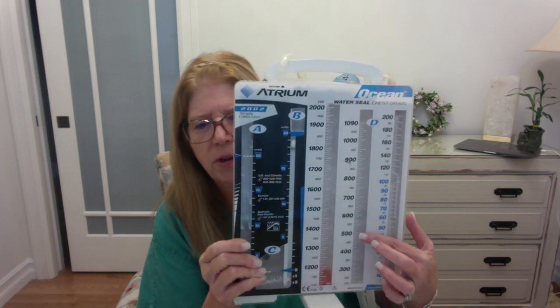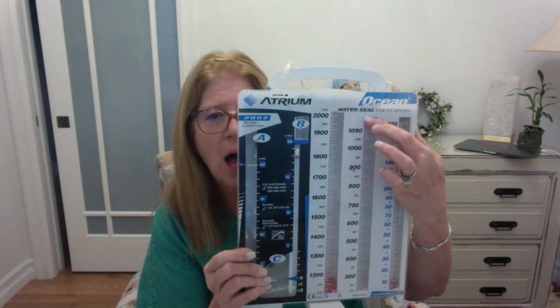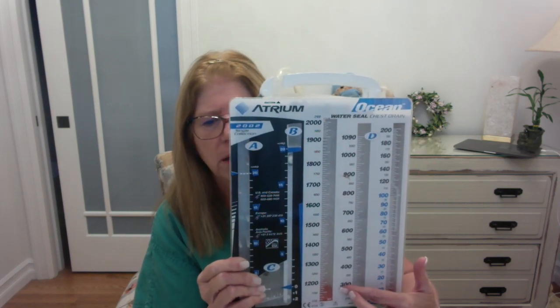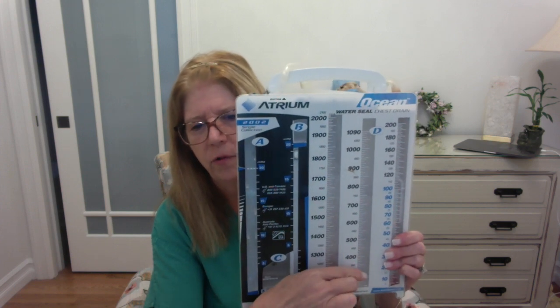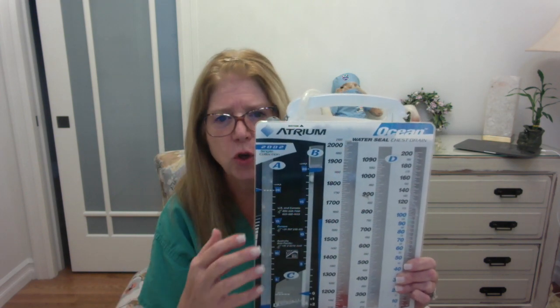And now we see that the increments are getting bigger, right? The increments are in hundreds at this point. If they fill up this entire column, again, the fluid now will move over into this third column, again still in increments of 100. You can see that the drainage portion of this chest tube unit is going to be able to hold 2,000 milliliters of drainage. Once this gets full, then this whole chest drainage unit has to be changed. We do not empty them, okay? So it can hold 2,000 milliliters of fluid.